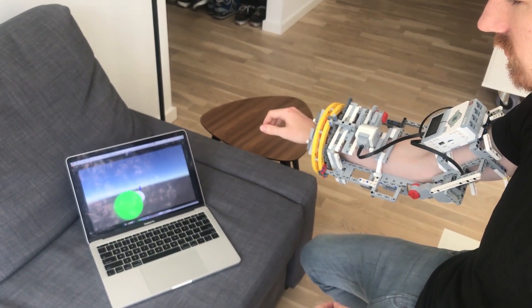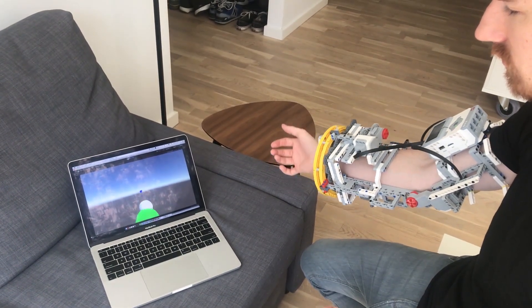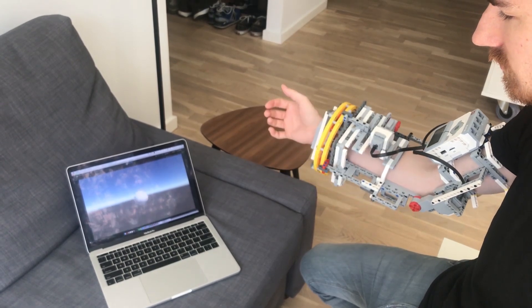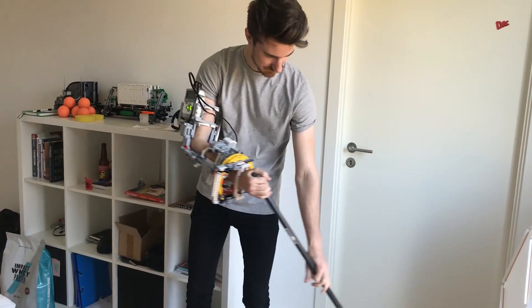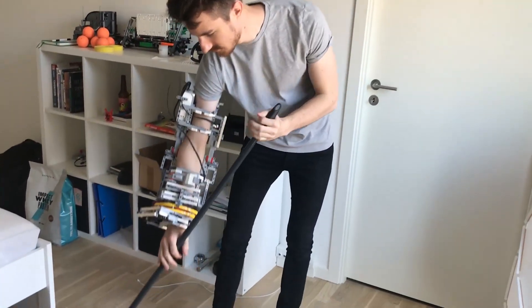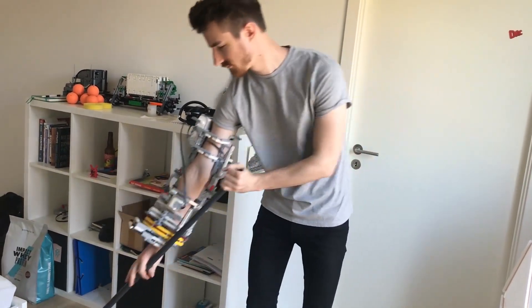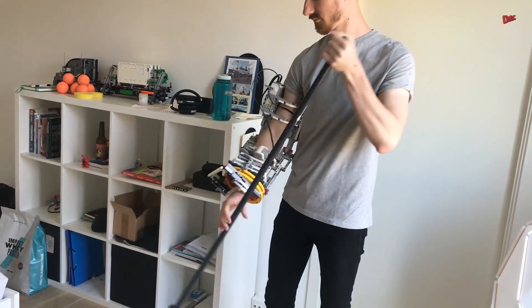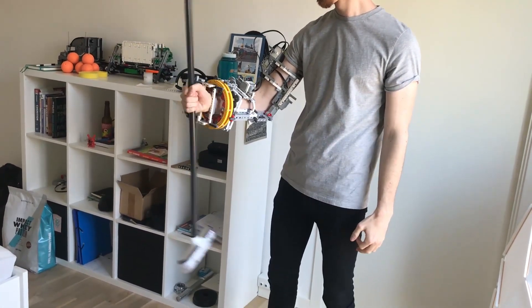The next step for us would be to integrate this prototype with the interfaces that we have developed. For instance, we could support patient rehabilitation through daily activity simulation using the broom to remove virtual dirt on the floor, as shown in the previous video section. We may develop interfaces for other common daily activities like eating or tooth brushing.